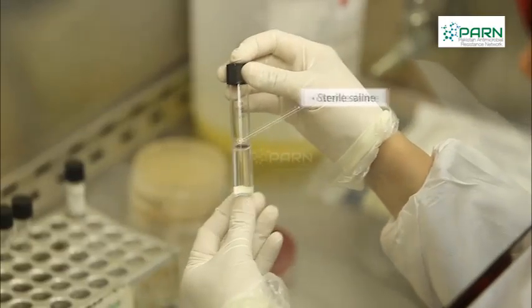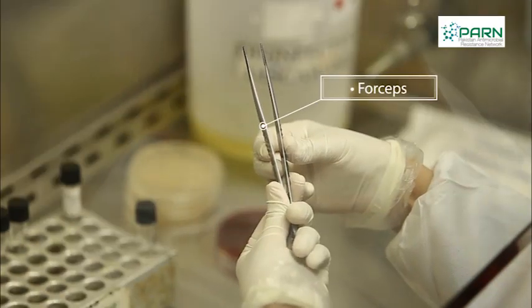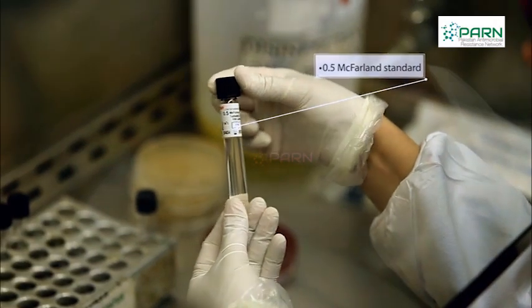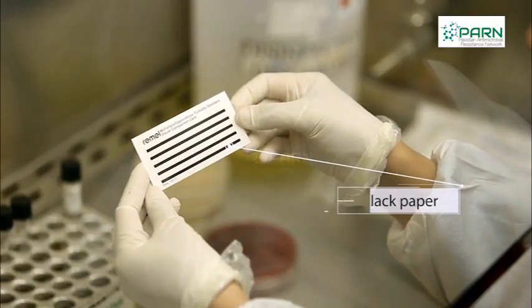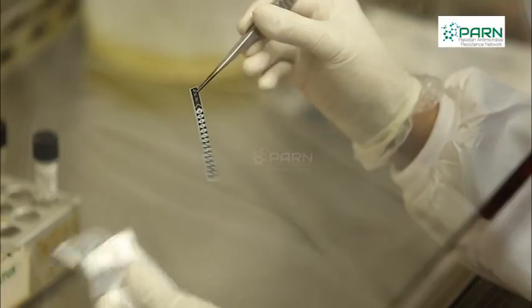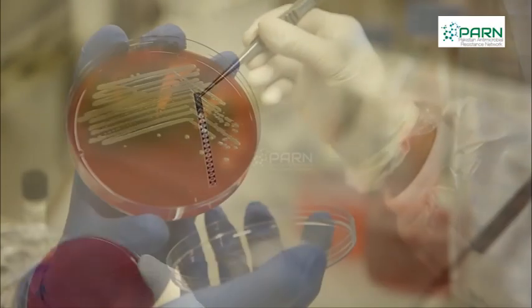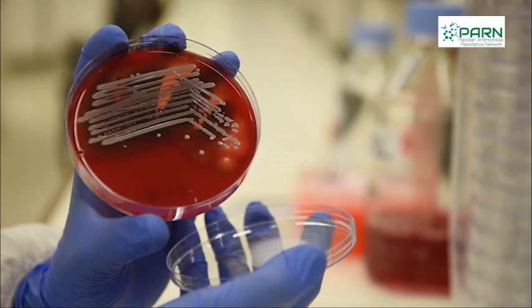Materials: sterile saline, sterile cotton swabs, forceps, McFarland standard, black paper, turbidometer, E-test strips, and media for purity plate.